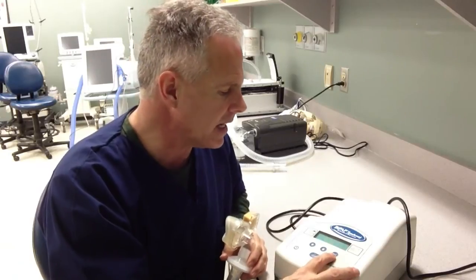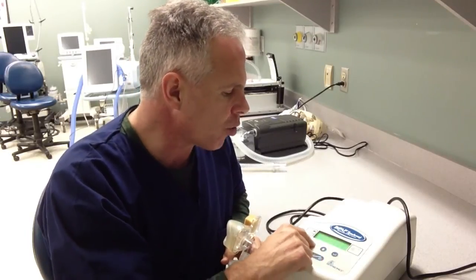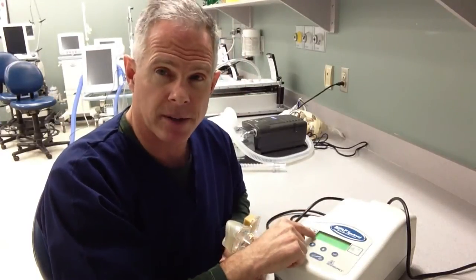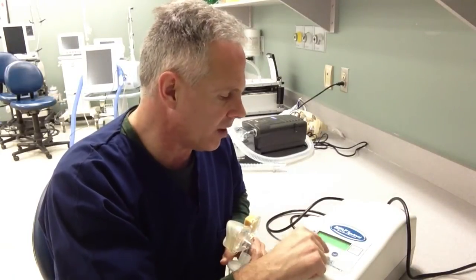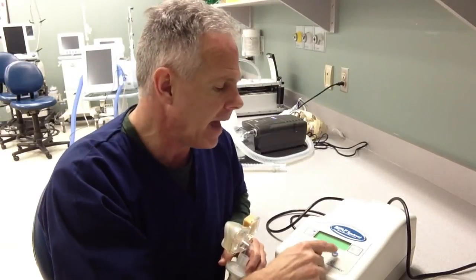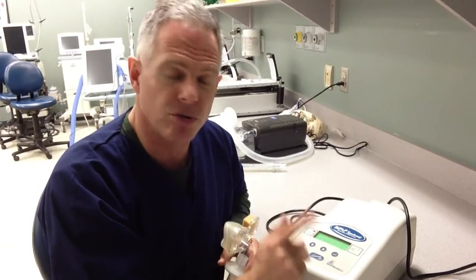To adjust the settings, we use our little arrow keys here. There's a little return key — if I push that down, it activates it. I just scroll down here until I get to my setup parameters. Once I'm into my setup parameters, I can then go in to set up a particular mode and just push the return key. When I push the return key again, it allows me to use the arrow keys to choose the mode.